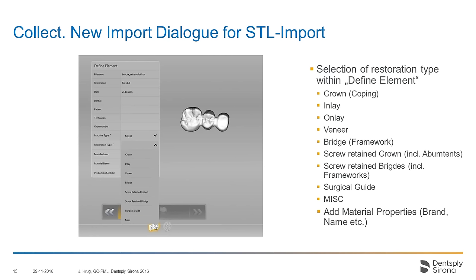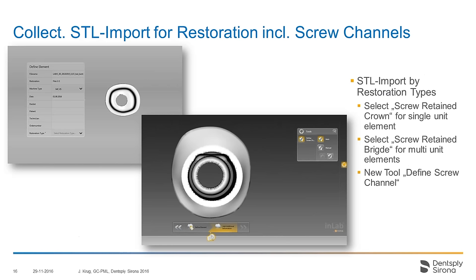If these files are together with XML additional information — like the 3OX or the construction info from exocad — information like margin, indication, and all this is prefilled and it really streamlines the workflow for importing multiple STL cases.